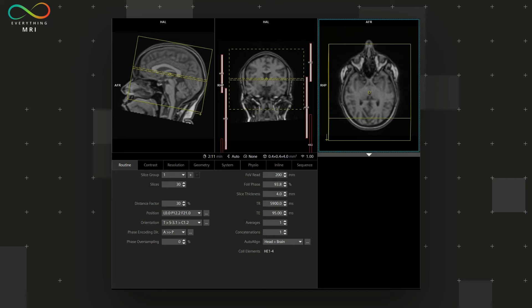However, before relying on phase oversampling to address image wrap, there might be another option worth exploring, namely changing the phase encoding direction. In this case, for our axial images, we will transition from an AP direction to a right-left direction.